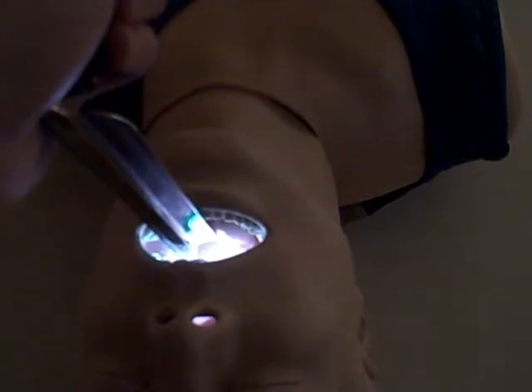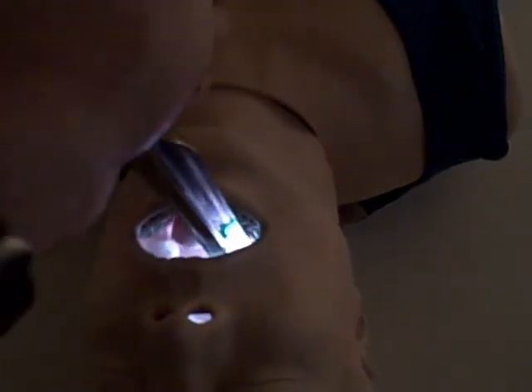And it's also very bright. I've been impressed as I've been using this on a mannequin recently to try to get a better sense of how it works. The nice thing about it is the bright LED light at the end.